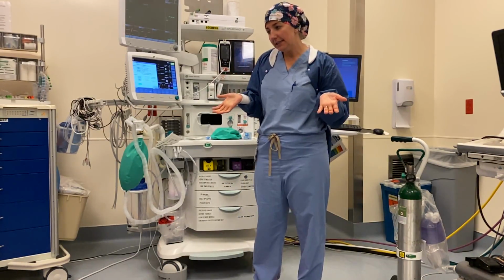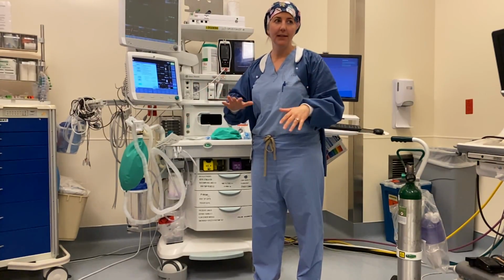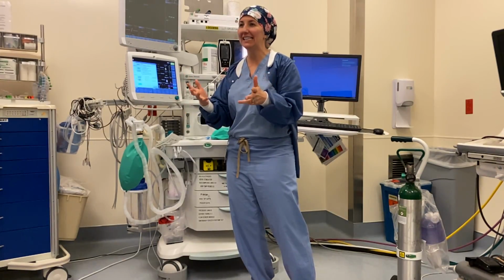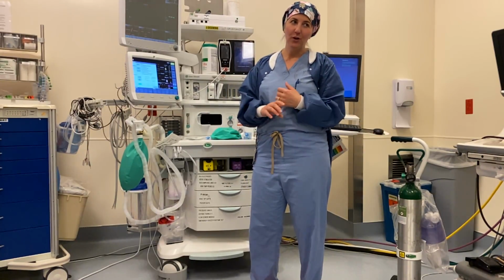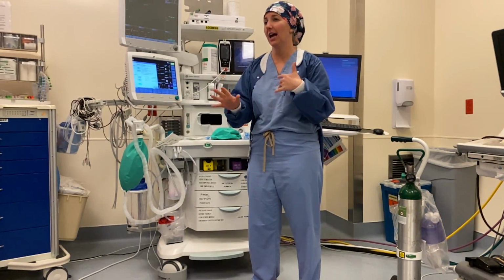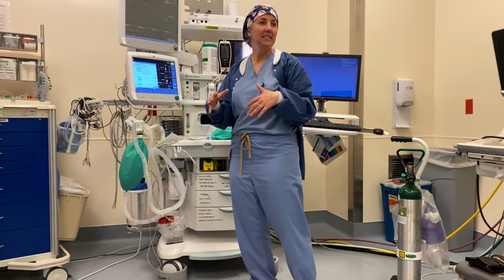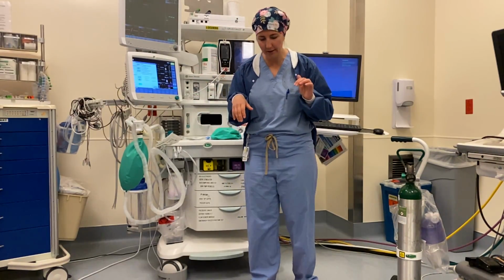So I'm going to present the least likely scenario to possibly happen: you're the last man standing, you're all we got, and you need to go set up the room, get it ready, and then take care of a patient all by yourself. And like I said before, that's not going to happen. You're going to have respiratory therapists, you're going to have anesthesia providers, you're going to have a support system to help you manage these patients. But by running through it this way, anything less than that will feel less overwhelming than this scenario. So hopefully you'll feel a little bit better about that.